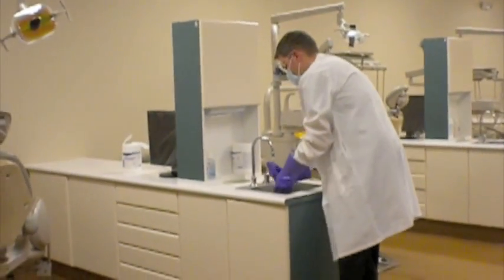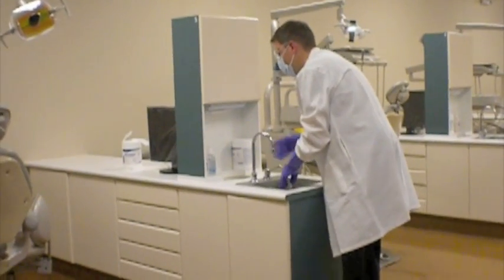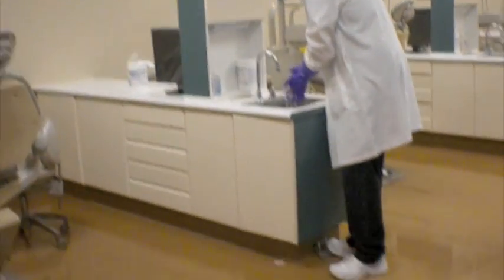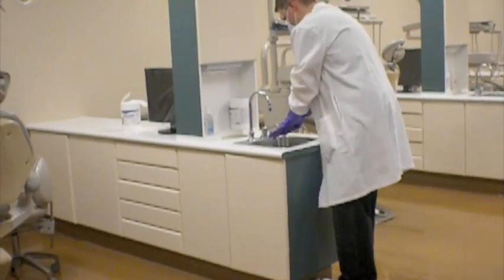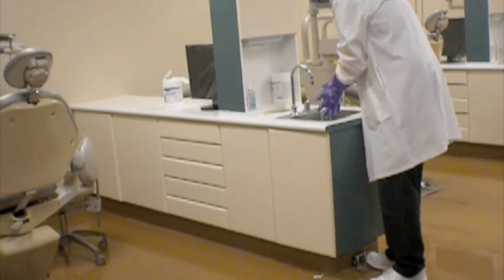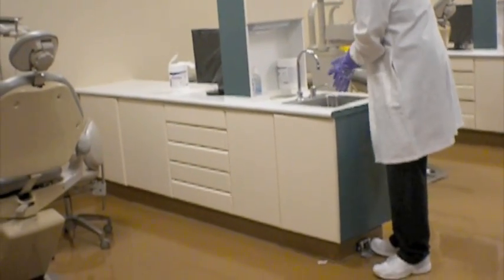But what we're going to do right now is show you what would happen. Let's say that this were the end of the disinfection wipe. Okay, this is the end. Let's say he had gone through it again for the second time, and now he's washing his gloved hands.